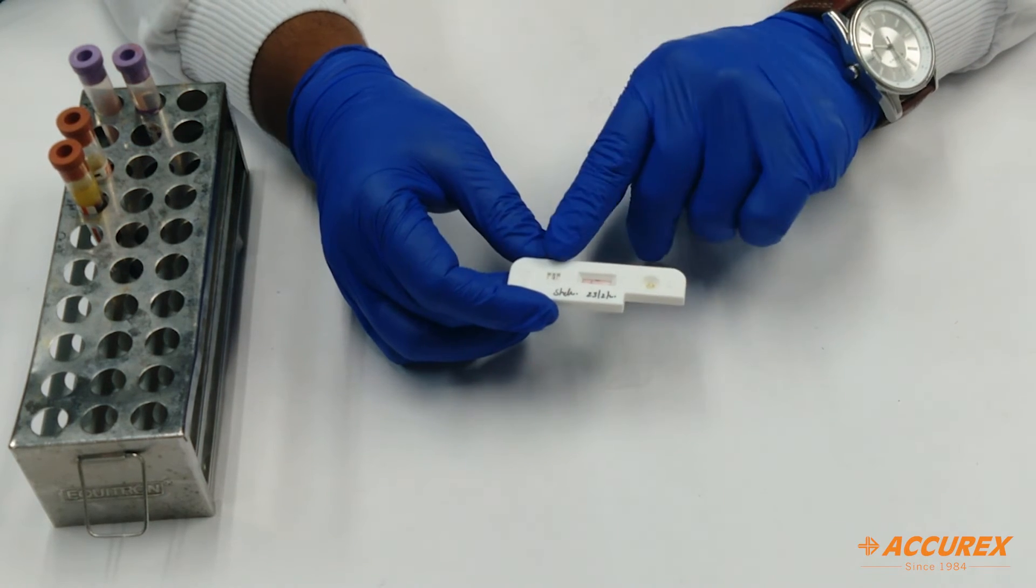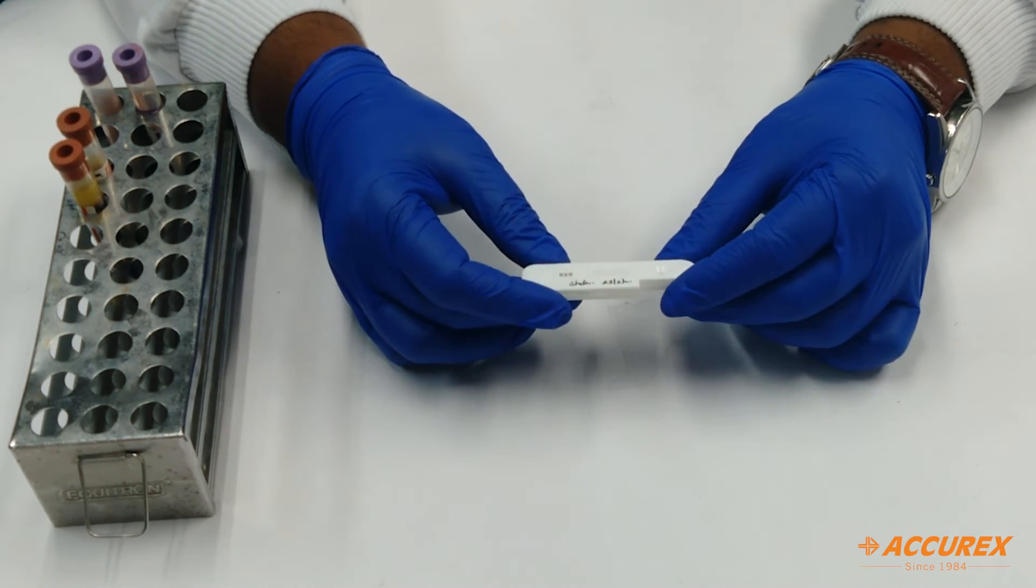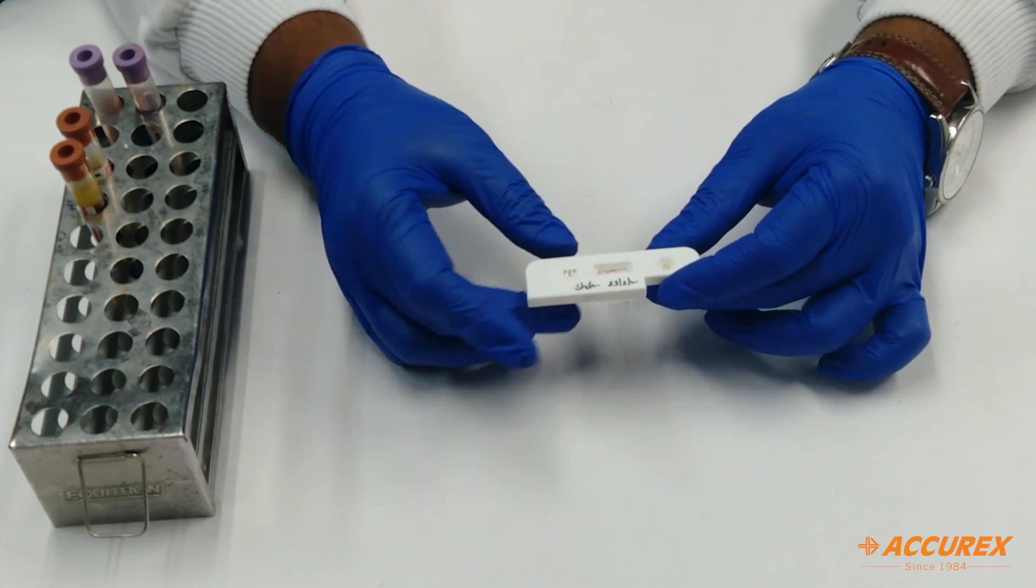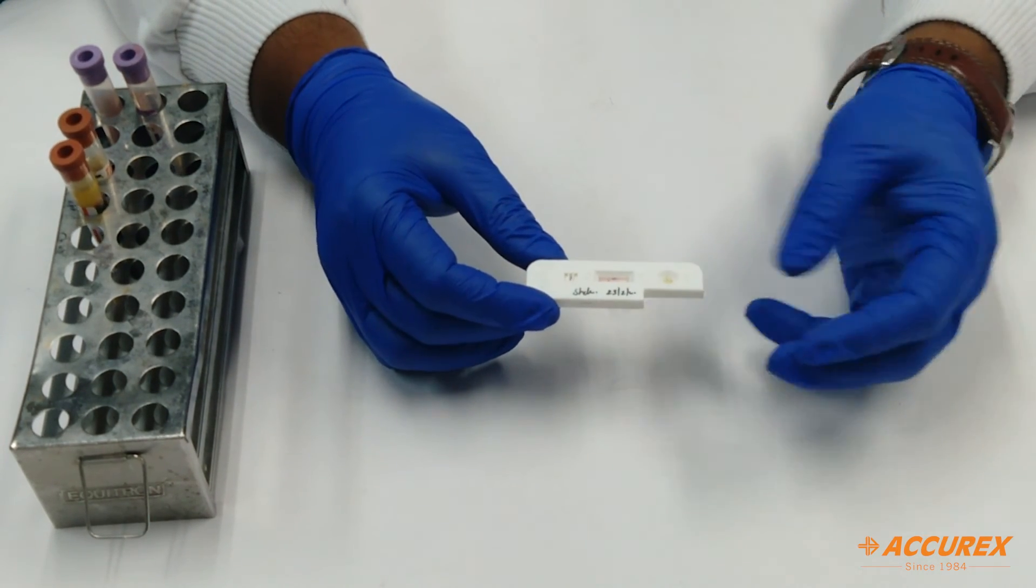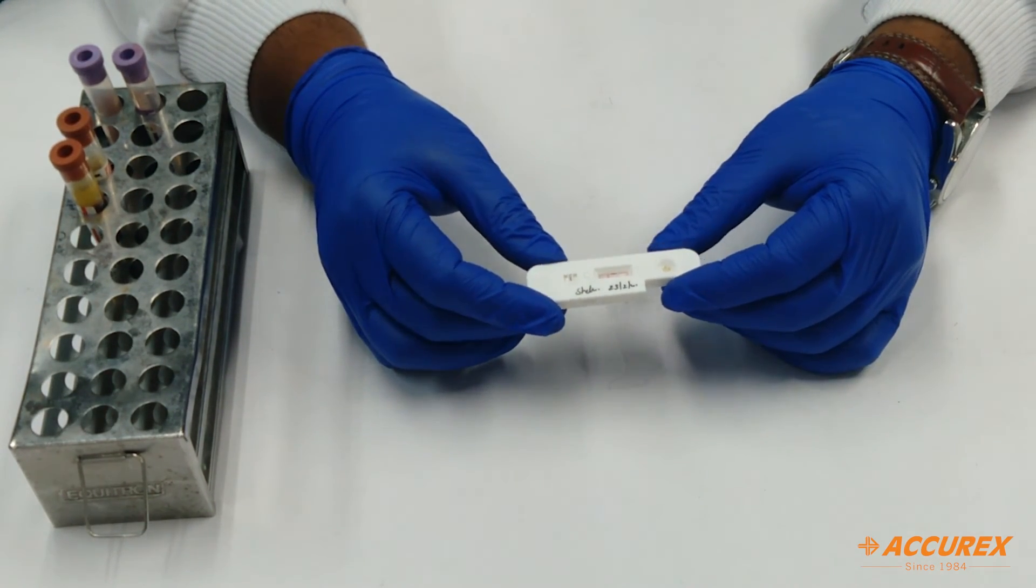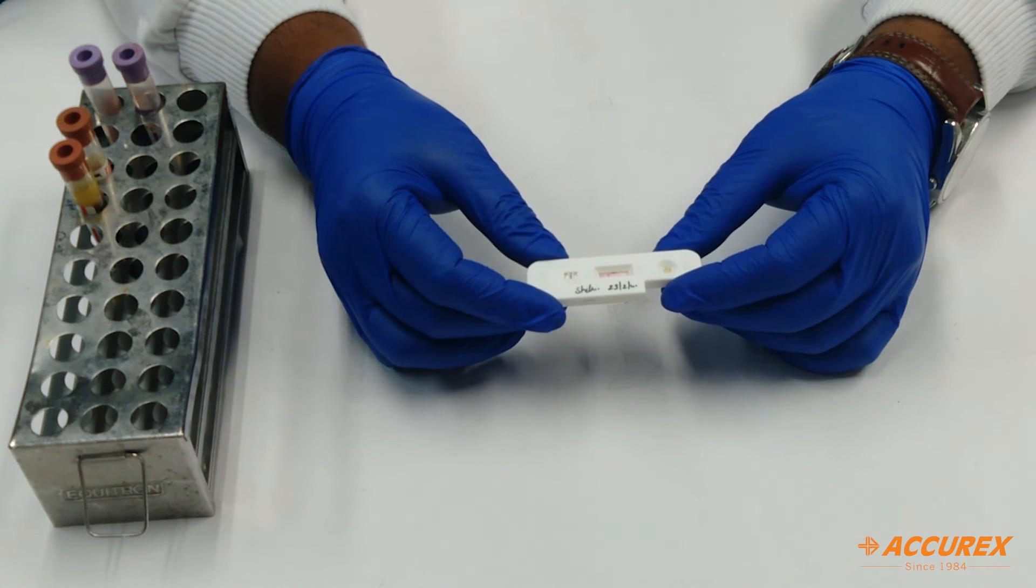If there is no line, it means the card is faulty. You need to repeat the test with a fresh one. Also make sure the test result is noted within 20 minutes. If it is noted after 20 minutes, there are many chances of getting false results. Thank you.